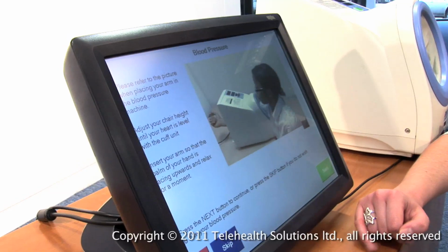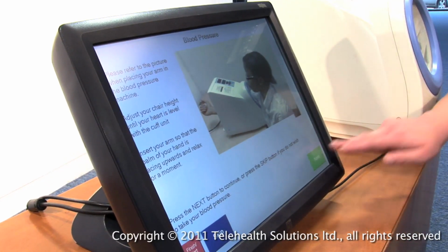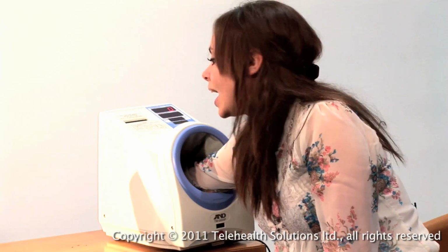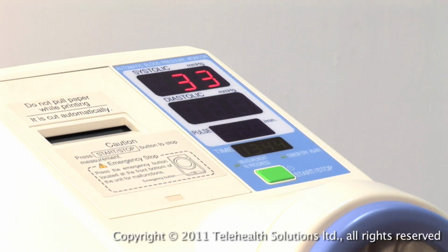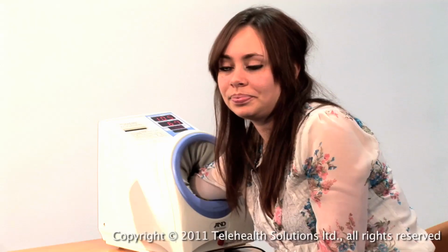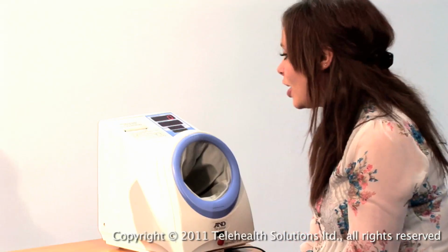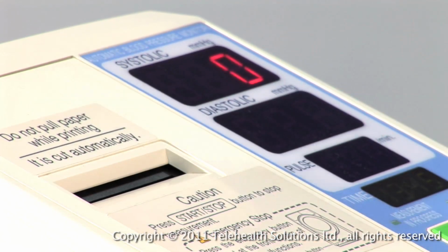The next test that they ask you to do is to measure your blood pressure using the arm BP unit here. So if you put your arm through, pretty much as far in as is comfortable, so it's resting on the back panel, then when you're ready, press the green start button at the top. The cuff will then close on your arm and take your BP measurement, which will take up to 30 seconds. Once the BP has finished, the cuff will release, remove your arm, and the results will appear on the screen and will print out on a piece of paper for you to keep.